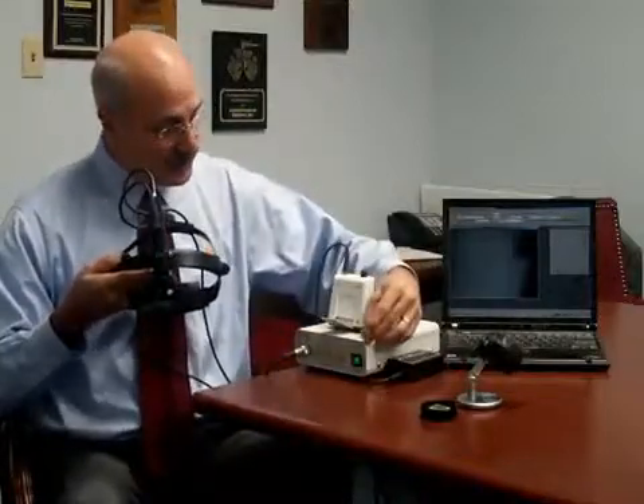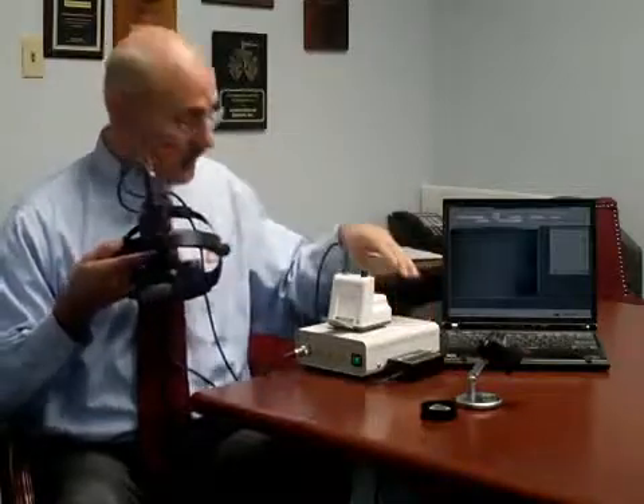The other components are the EN50, which is a standard power supply for the illumination system of the indirect, and a camera control unit, which is a low-light camera providing much better image quality even at lower light settings. It has both composite and S-video output. We now also incorporate an external digitizer that will allow you to interface with any computer, giving you the ability to digitize both still and full motion video.